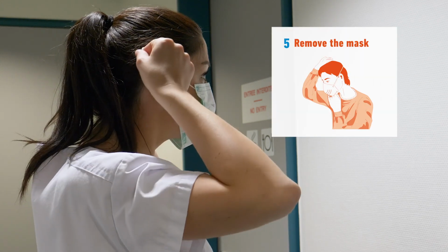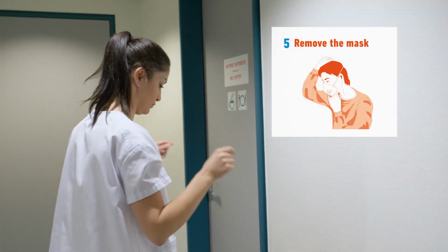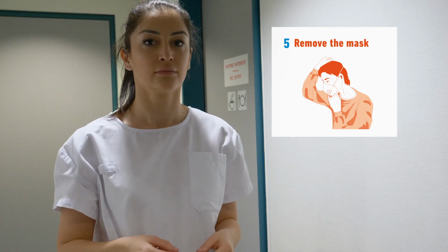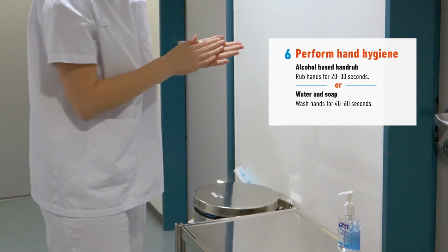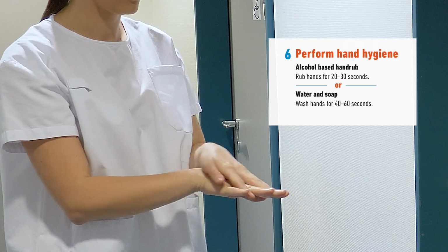Next, remove the mask or respirator by pulling it from the straps in the rear and disposing of it in a disposal container or garbage. Avoid touching the mask. Now, as a final step, perform your final hand hygiene with alcohol-based hand rub or with soap and water if they are visibly soiled.